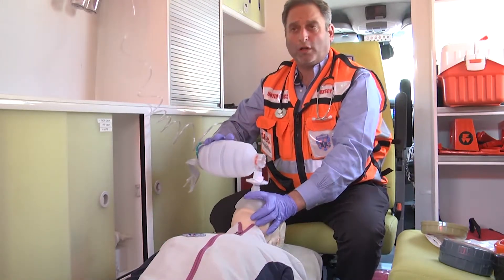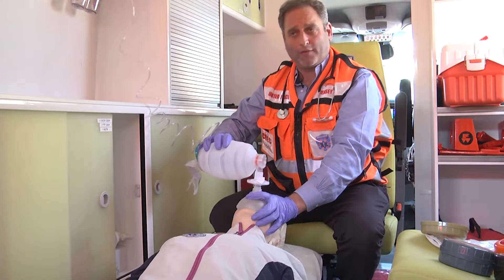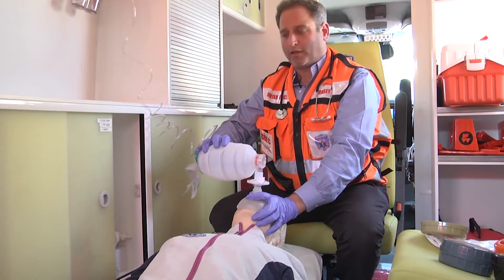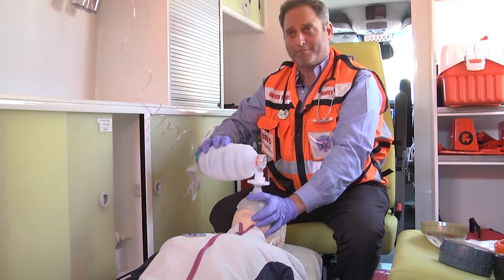The use is very comfortable due to the great materials used on the surface, enabling a good grip and use for a long time with lower fatigue because of the materials. That's the pocket BVM with O2 tubing. Thank you very much.